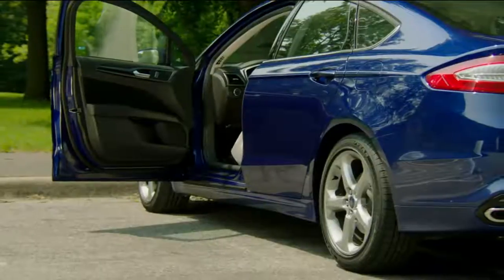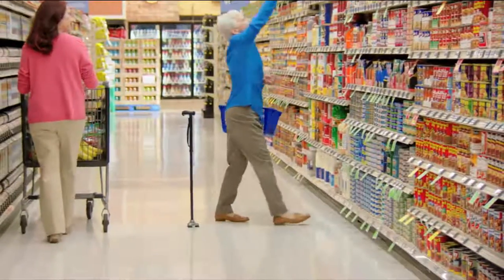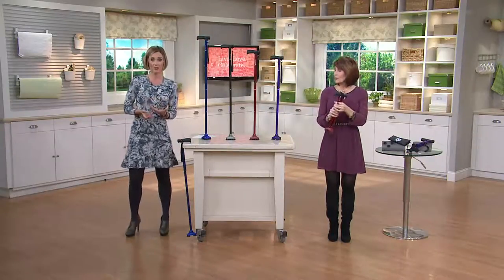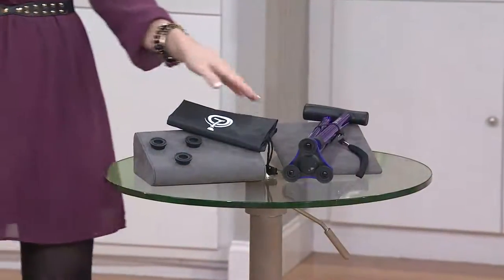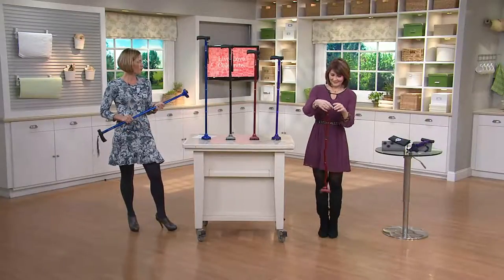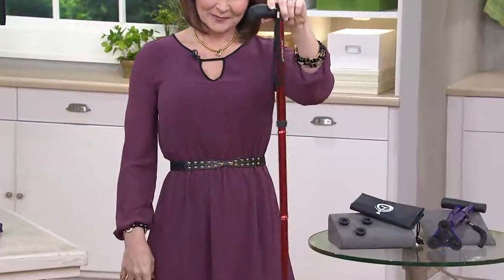And all-terrain, which is very nice. Not all canes are all-terrain, so it's nice to have that as well — and a nice, sleek look. Remember, at retail you could get the HurryCane with the three extra feet for $49. We take $10 off and add in a bag, so you've got your little carrying bag as well. Colors available are blue, silver — which is actually black in the cane part and silver in the base — the red, which has been popular, and also purple.